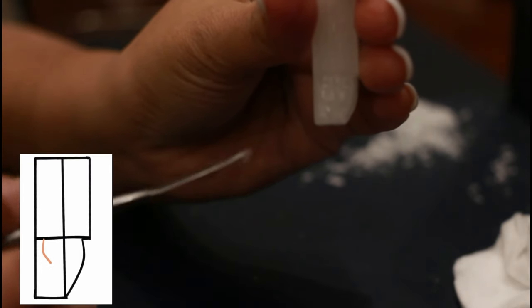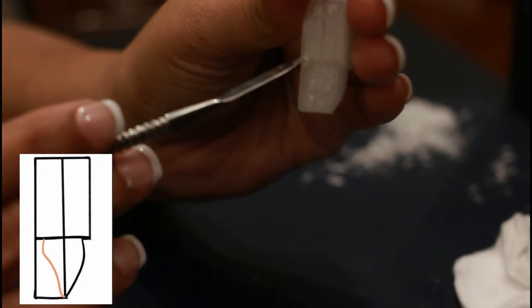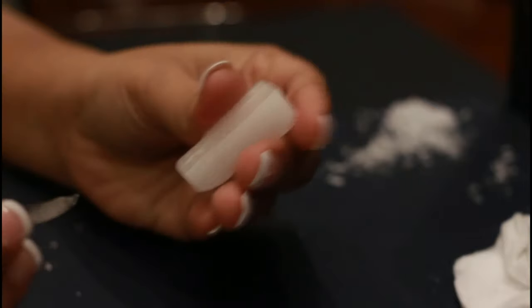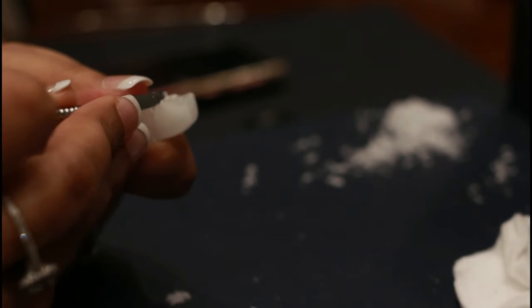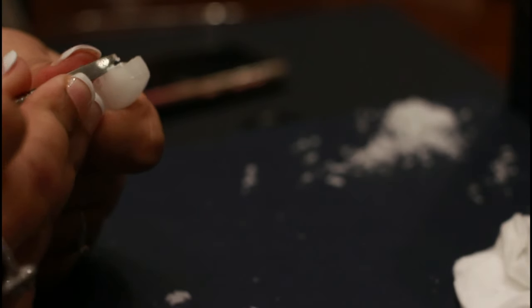Continue this on the other side. Redraw the mesial and distal surface outline and trim the excess wax. I've already cleared excess from the labial aspect of the mesial surface. Now let's remove the lingual excess — start from the incisal third where the excess is maximum, and then slowly progress to the middle third and then to the cervical third.